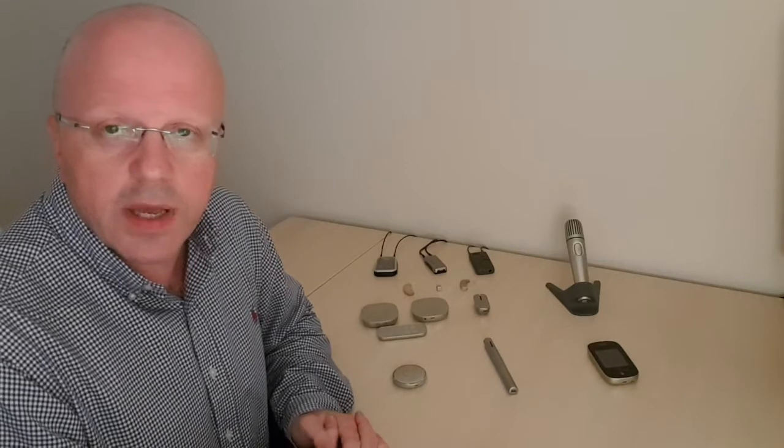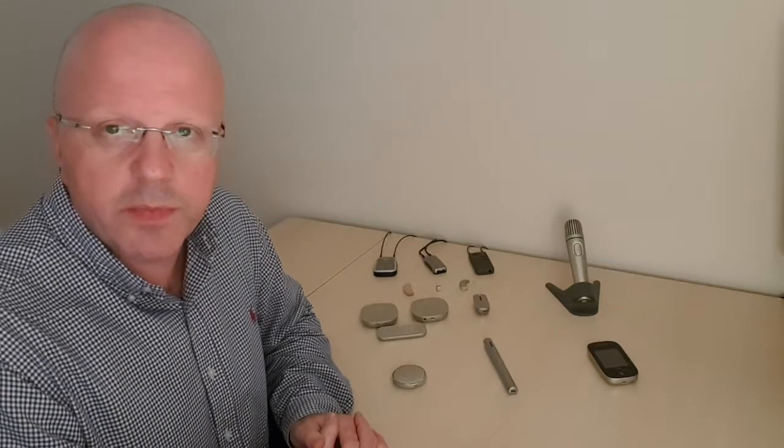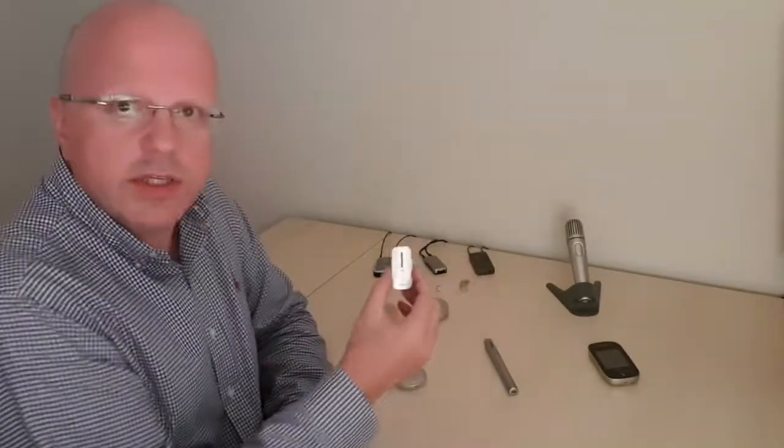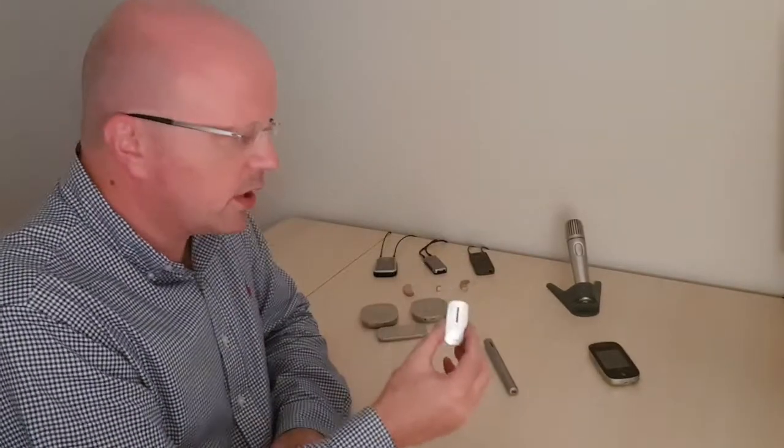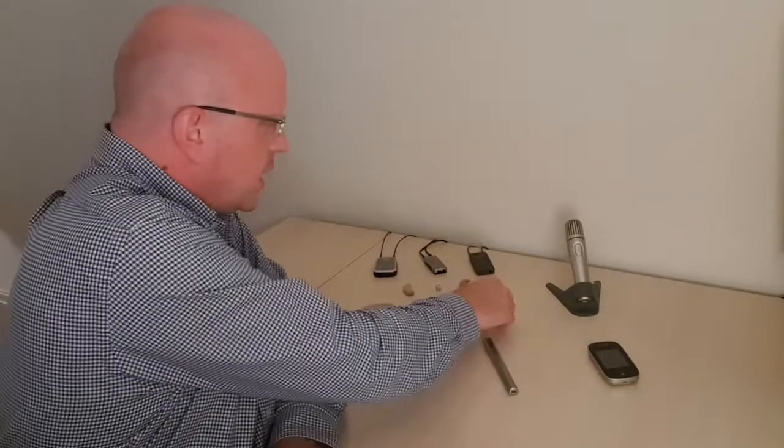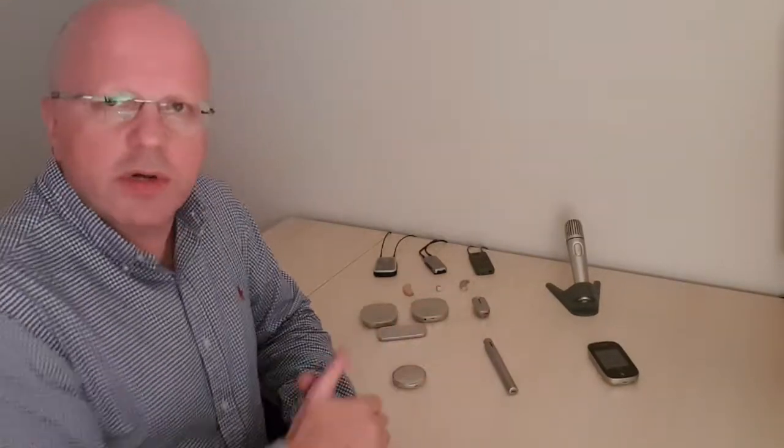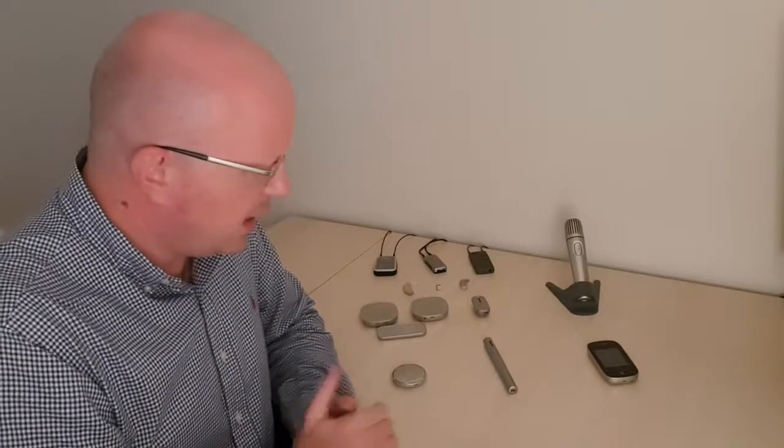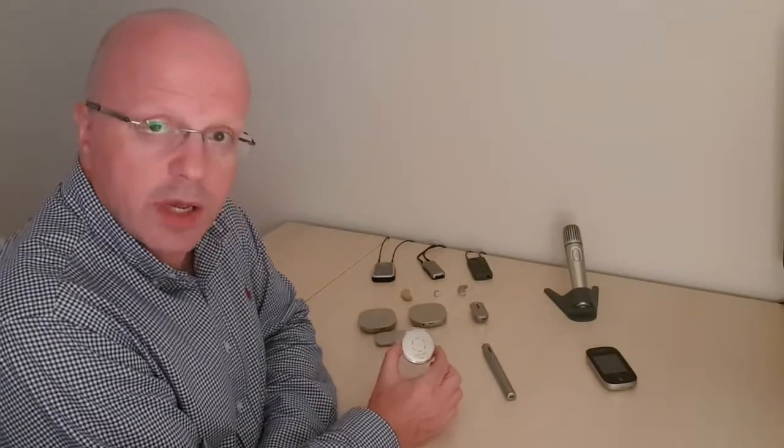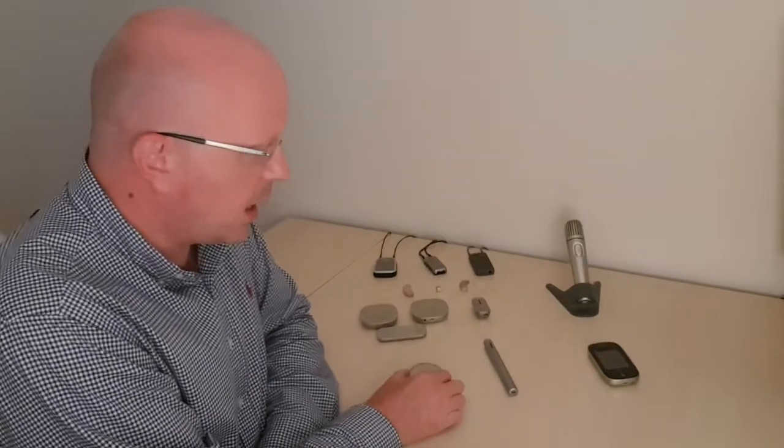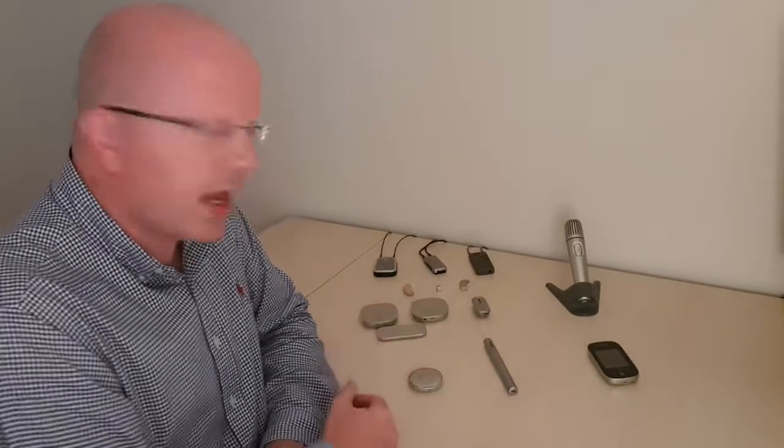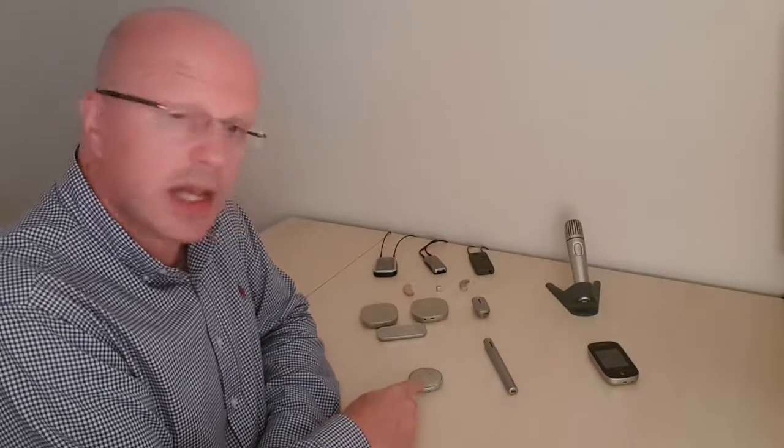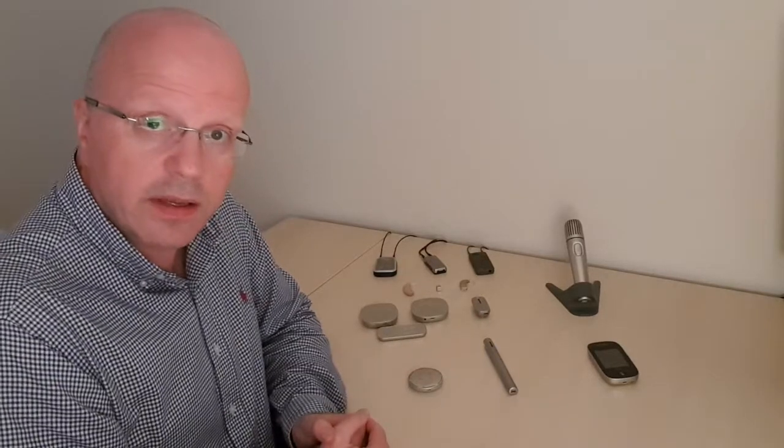And if you're looking at a bigger group of people, you might consider table mics. Okay. You've also got a clip-on mic, which is a lapel mic that can work in conjunction with the primary transmitters. The clip-on mic works pretty well with the Roger Pen. It doesn't actually work so well with the Select we've found. But the table mic works very well in conjunction both with the Select and with the Pen.